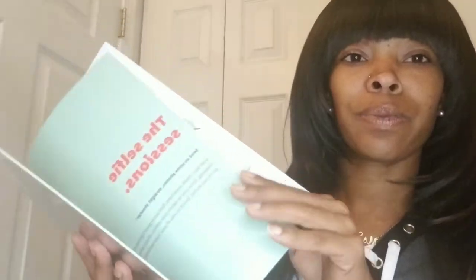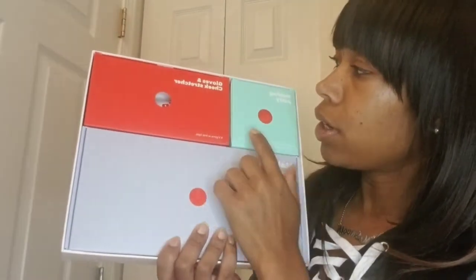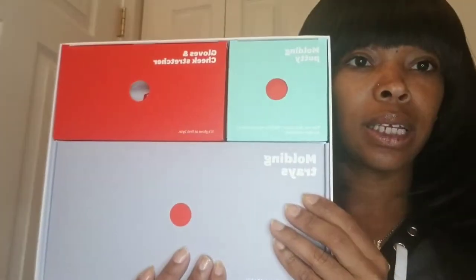This is your manual — you'll get a manual book with it, and it tells you what to do. Then you have your instructions, which come after the manual. And then you have your mold and putty, your gloves and cheek stretcher, and your mold and trays. That's what everything looks like when it comes.